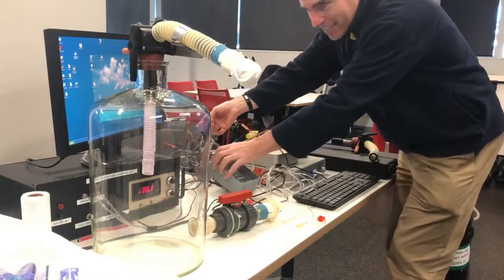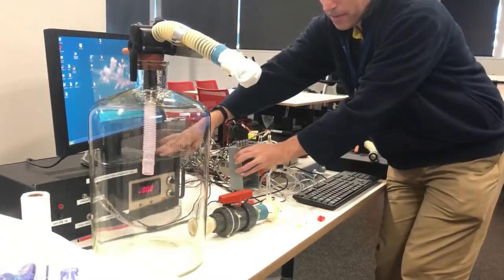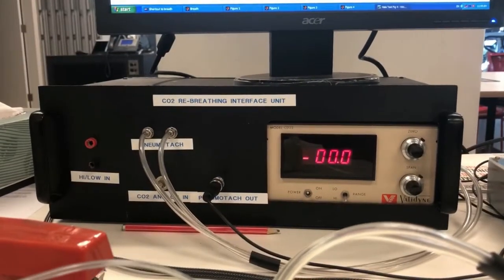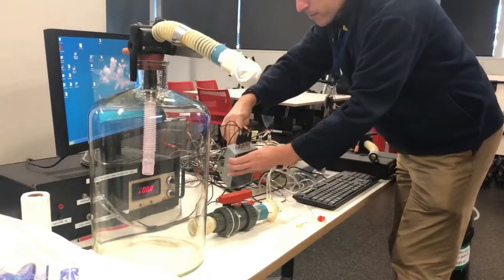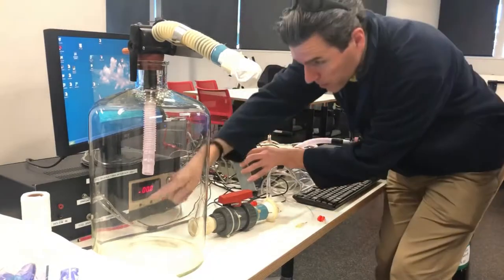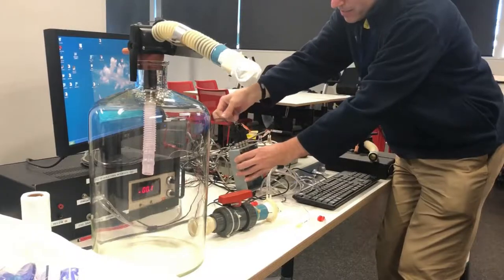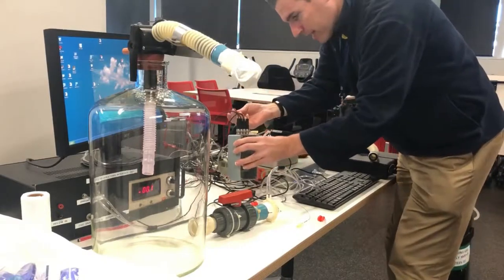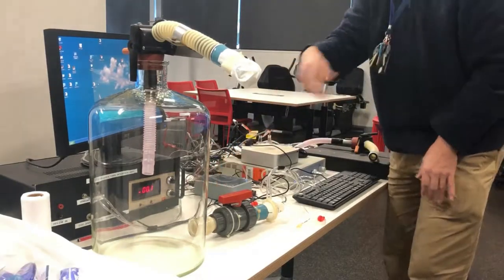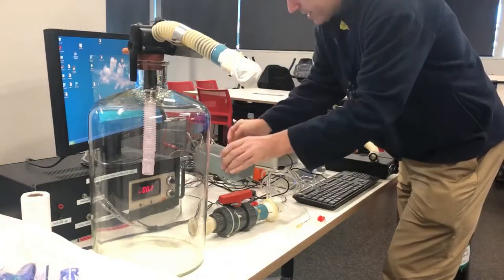The pneumotach is this black box labeled 'pneumotach'. Port three is what it plugs into, going from pneumotach out on that box to pneumotach in on this box. The last connection is the switch for the restriction handle — so those are all the things plugged into the integration box.